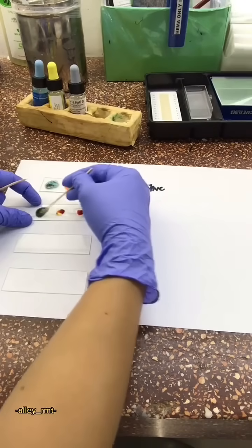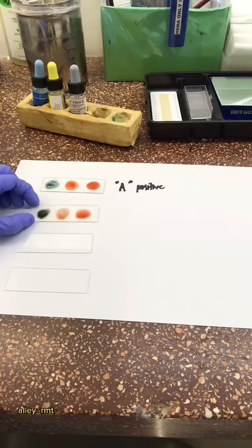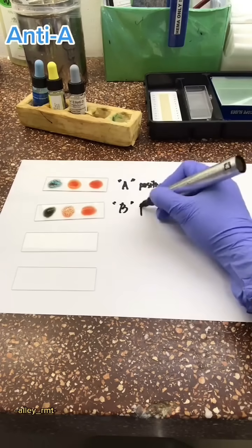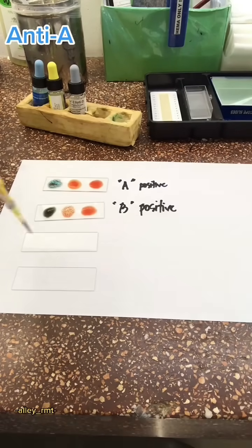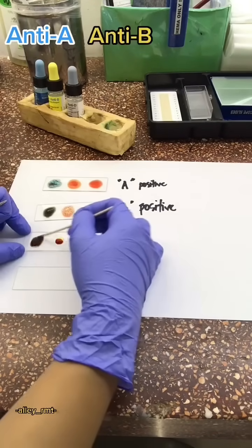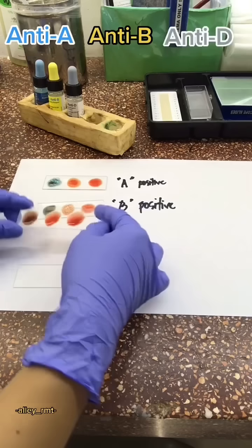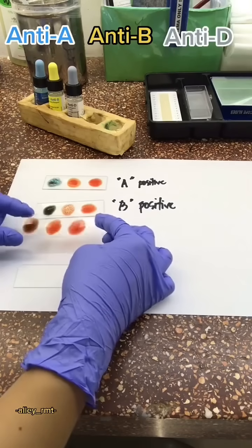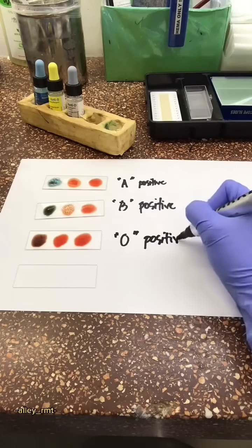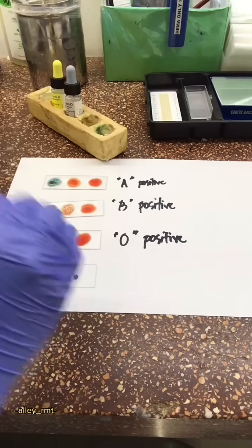The three bottles that you see are blood typing reagents and they are called anti-sera. The blue one contains anti-A antibodies, the yellow one contains anti-B antibodies, and the gray one contains anti-D antibodies. We mix your blood sample with the anti-sera and see how it reacts.